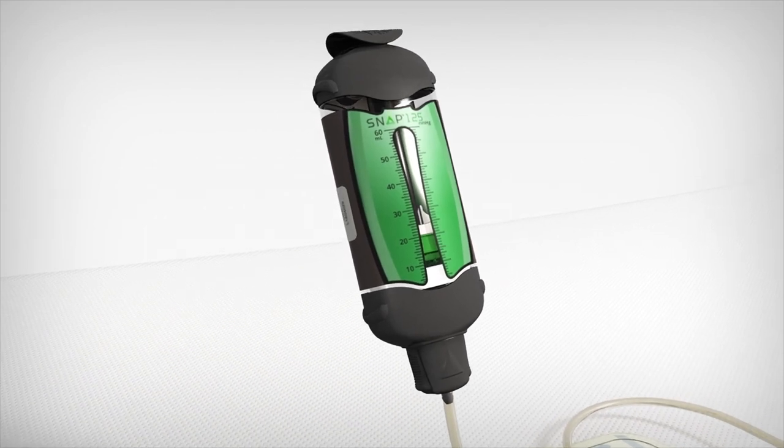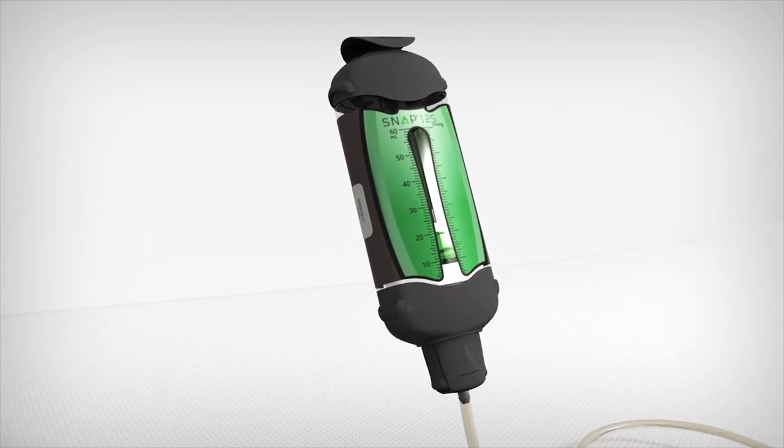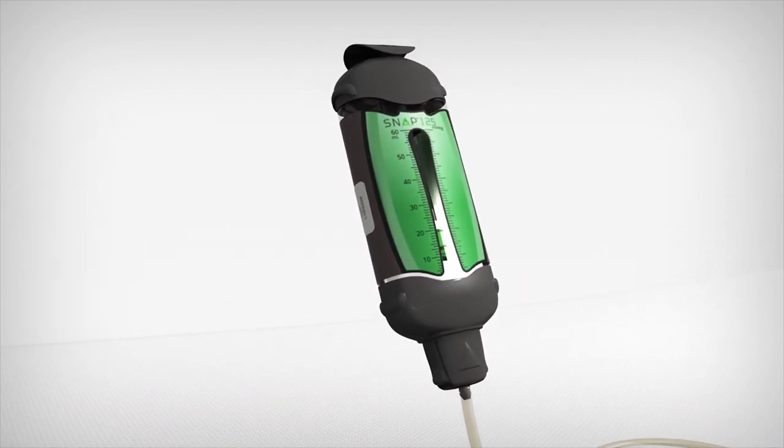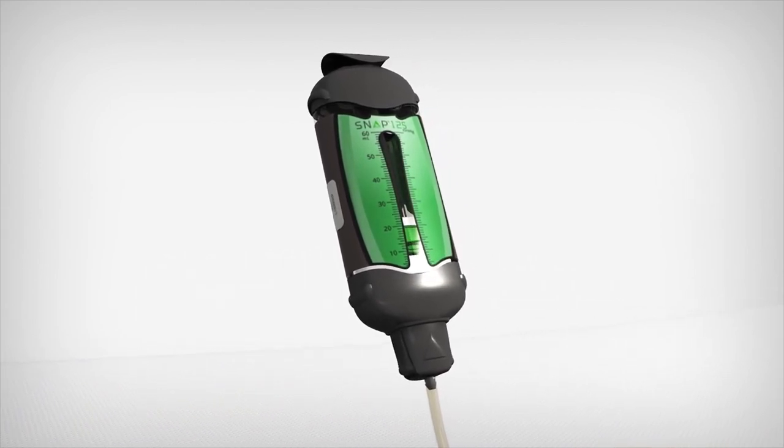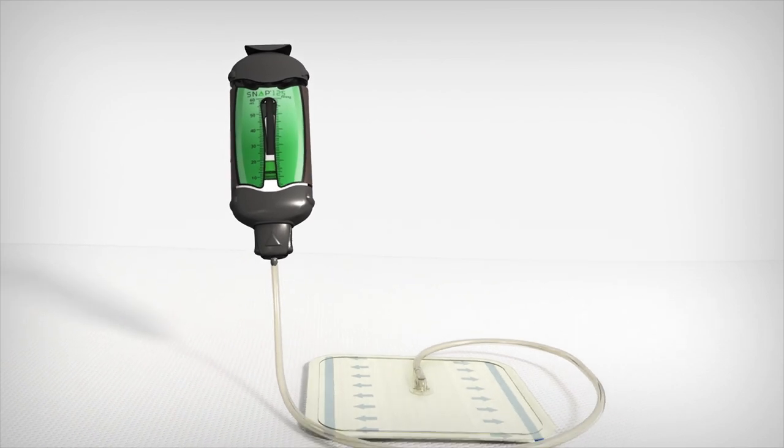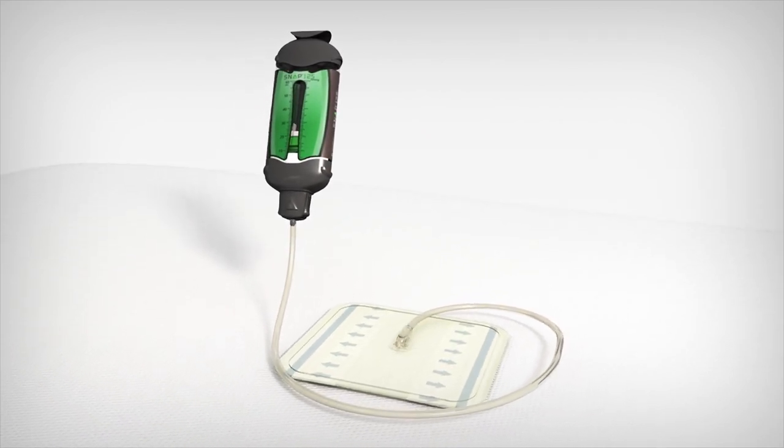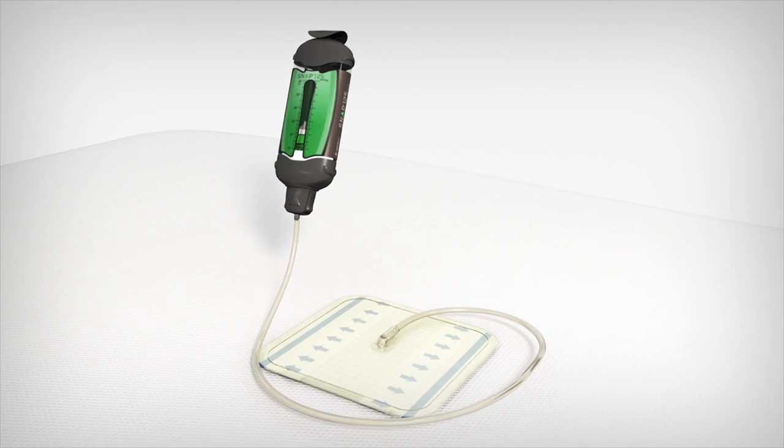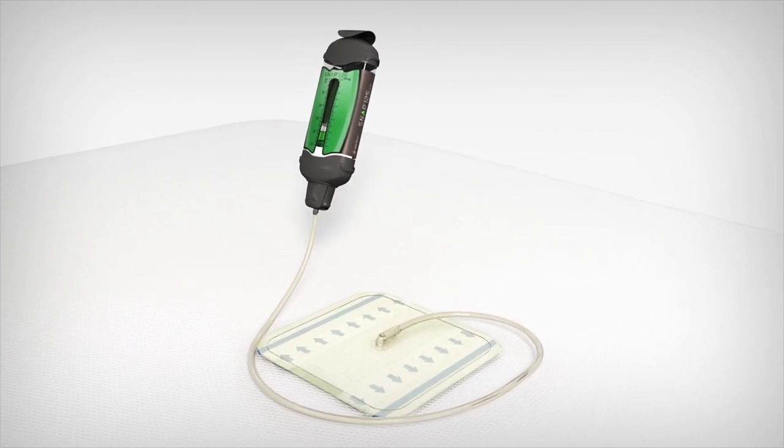What if you can give your patients a smarter negative pressure wound therapy option? One that's truly portable, discreet? Say hello to 3M's SNAP therapy system. The system combines the simplicity of advanced wound dressings with the proven benefits of negative pressure wound therapy in a discreet design that won't get noticed.